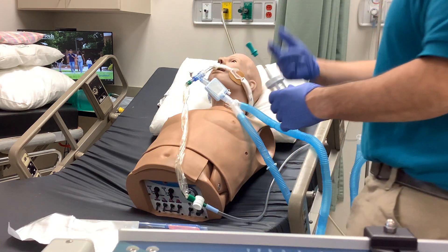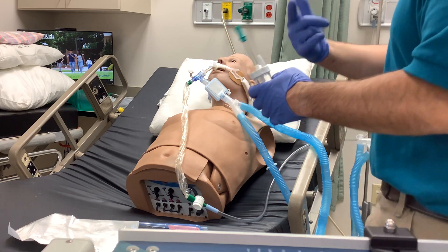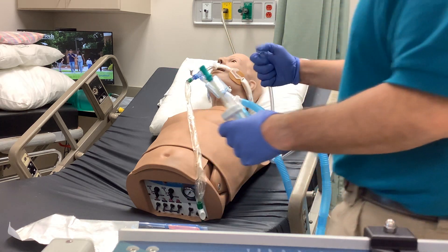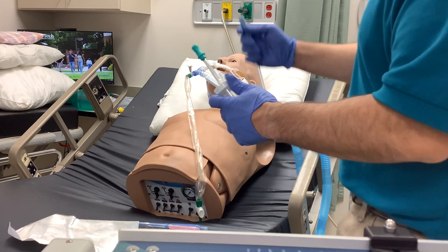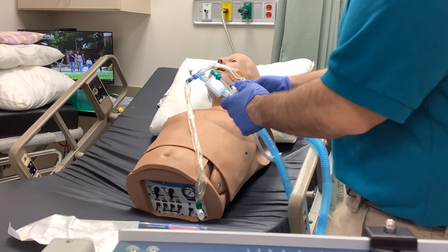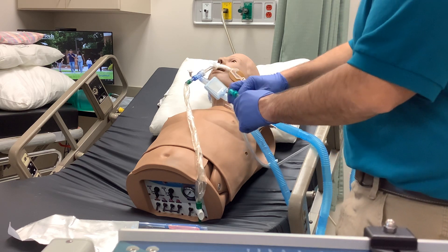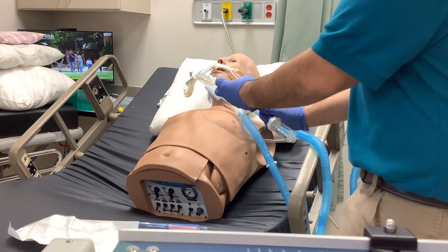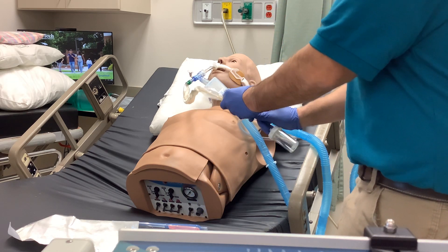You've got your suction tubing, which is going to connect here. Disconnect here — I've got vacuum on this, so make sure this is nice and tight. Turn it clockwise as tight as you can, then attach your suction tube in there. Now I can take and attach my Ballard here.